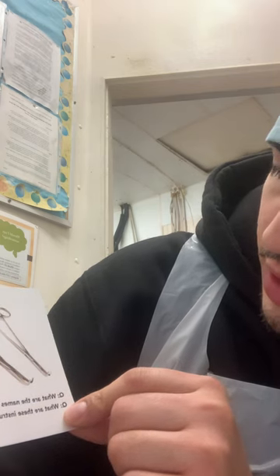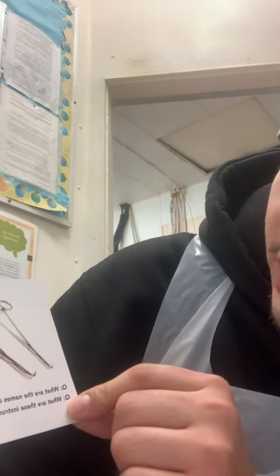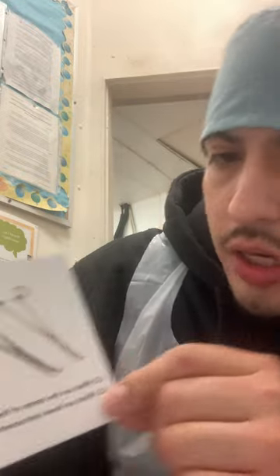The second card — let's see this one right here. It is also a clamp. What are the names of those instruments? We have two sizes shown here. The one is a straight standard right angle clamp — a short and a long one. What are these instruments used for? This right angle clamp is used to get into tight spaces and around the vessels. Interesting — very cool.